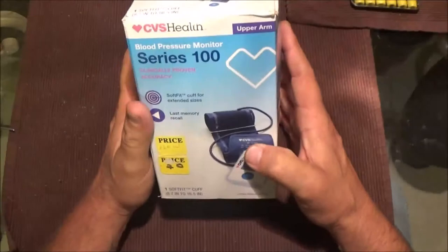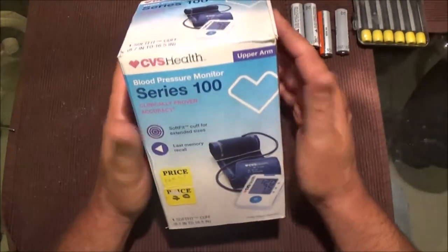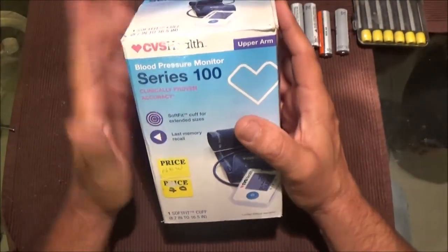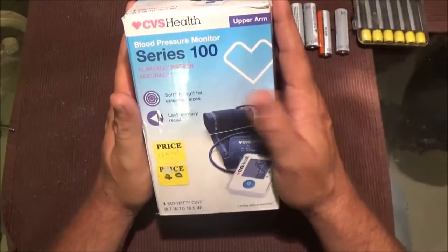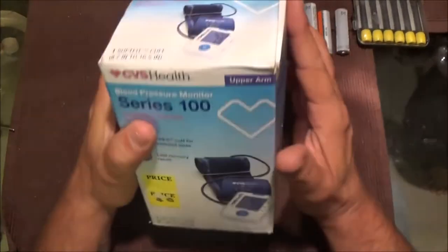It's just reading an error code 3. I got some batteries here, got our screwdrivers. I've never had one of these apart. It doesn't work and you can't take it back — he's called them. So if we break it more, it doesn't matter. We're just going to take it apart and see what's going on. If we fix it, it still won't be for sale because it's something you don't want screwing up on you. But let's see what we can do with it.